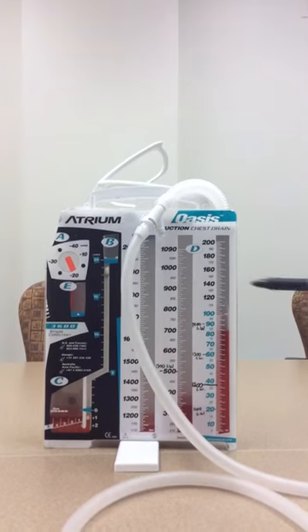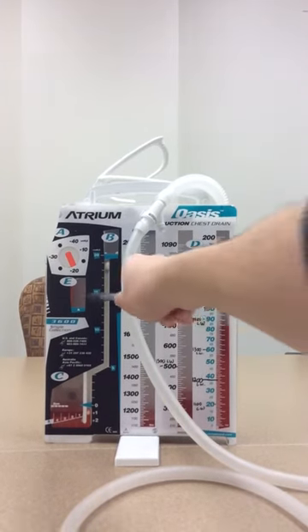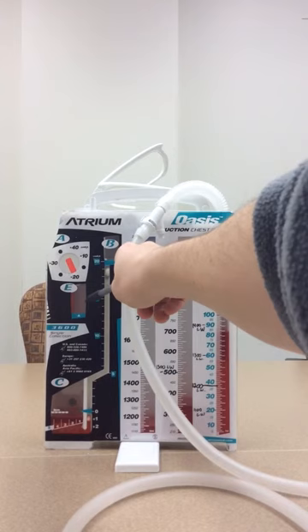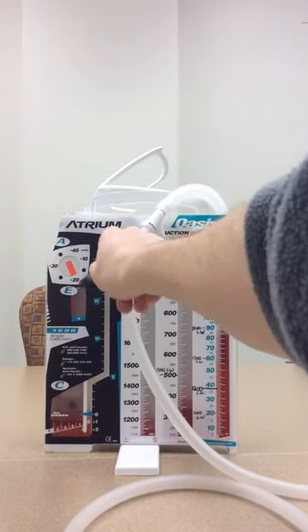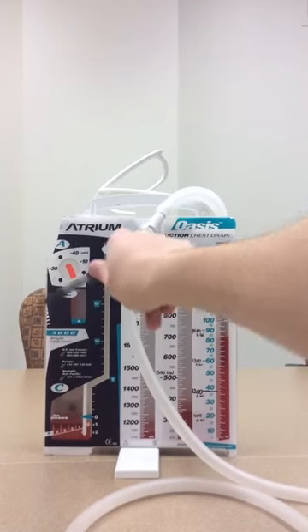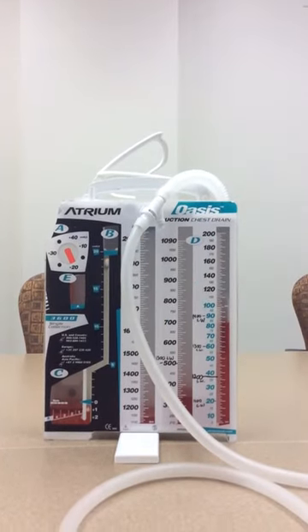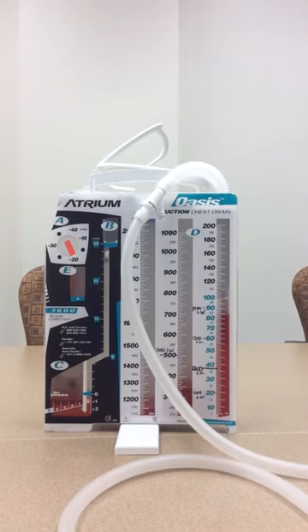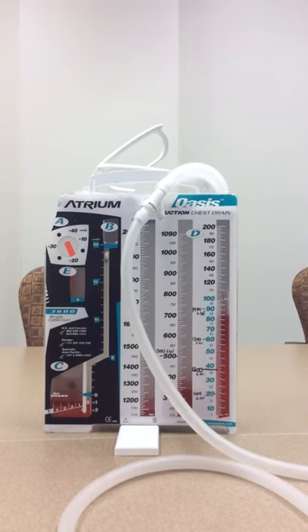And E is your suction monitor bellow, and what this does is that when your suction's on it lets you know how much suction is being applied, so it needs to be at this arrow. And if it's at that arrow, then that lets you know that there's adequate suction into the device to provide negative pressure.